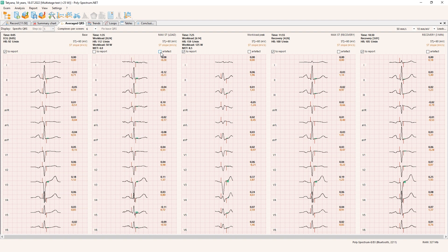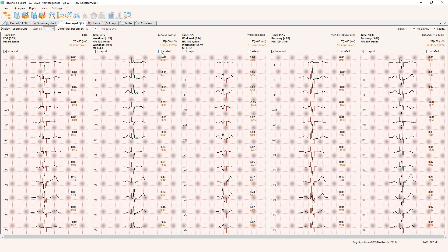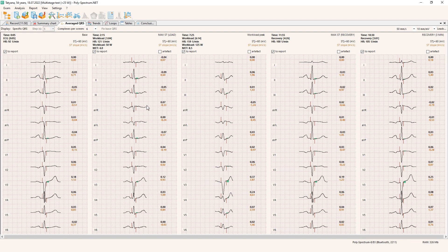For example, this complex is an artifact, so I want to mark it as artifact and include something more neutral in the report. I select which ones to include so as not to confuse specialists with a picture of significant ST depression that was really due to motion artifacts or averaging algorithm artifact. Now I have complexes that will be displayed in the report with nothing problematic.